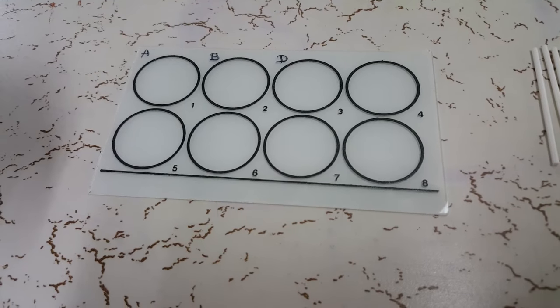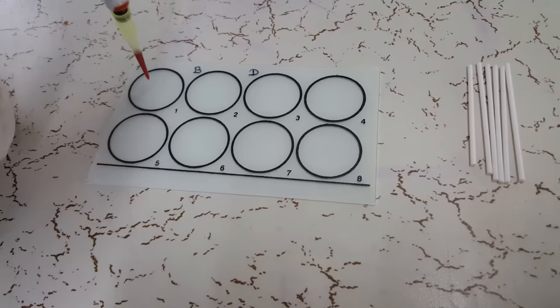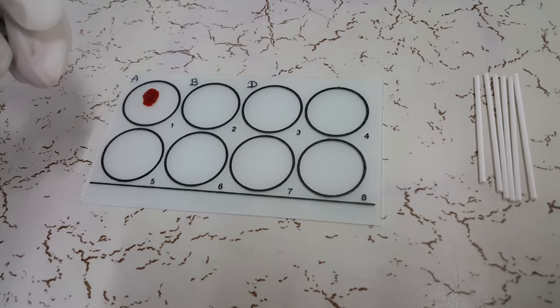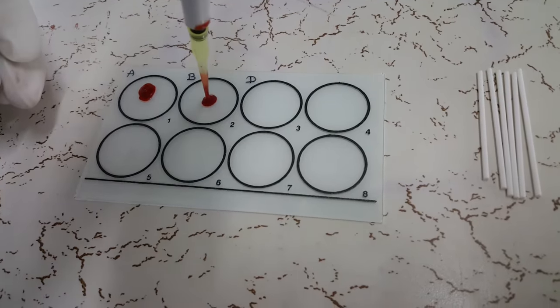Now let's have a look at the procedure. Place one drop of patient blood sample on three different circles on a glass slide.